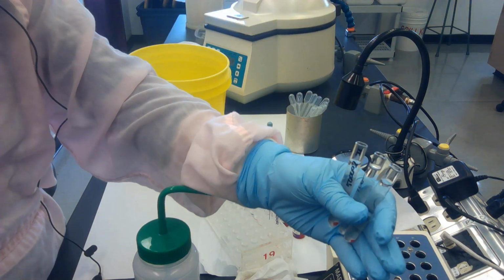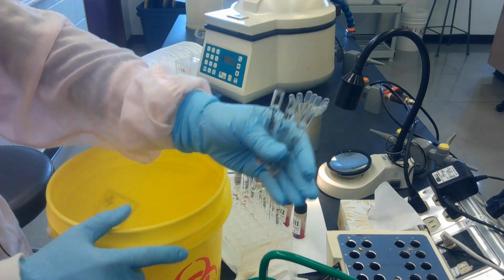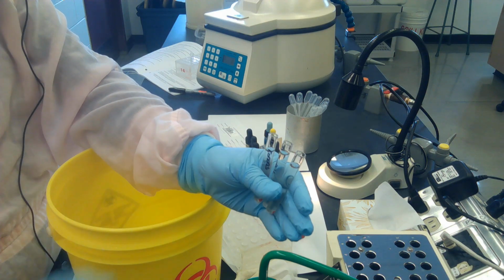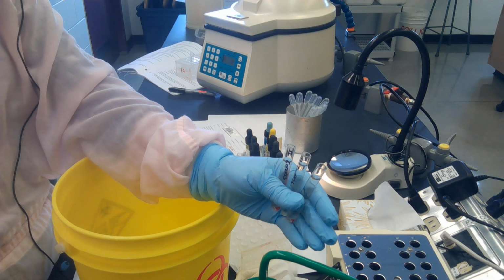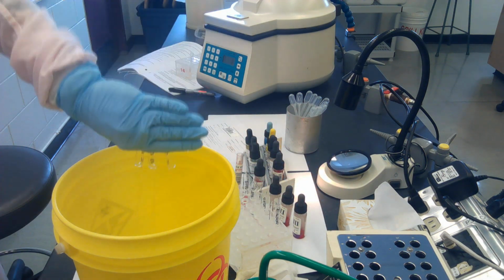So I'm going to dump all 3 tubes at once. I would recommend 1 tube at a time until you get good at this. But notice again that I'm leaving the tops of the tubes separated so that liquid cannot pass from one to the other. So the motion is always the same. It's a hard dump for washes before we use anti-human globulin. So a nice hard dump.